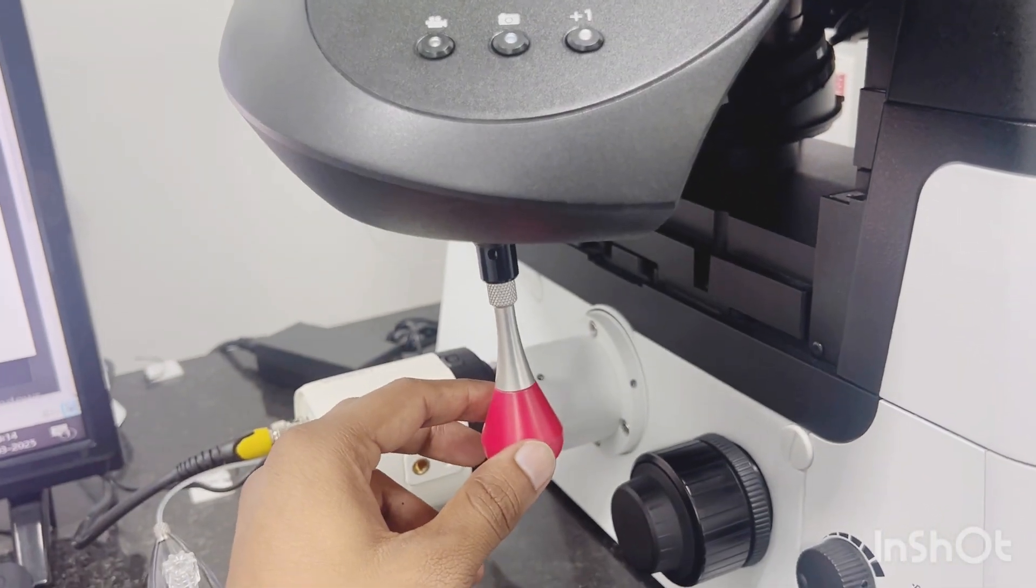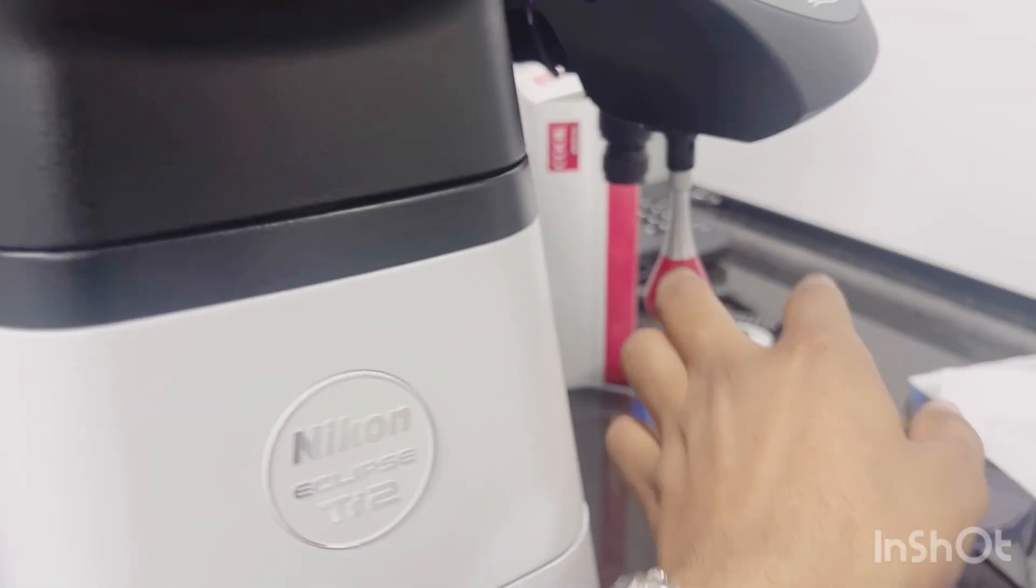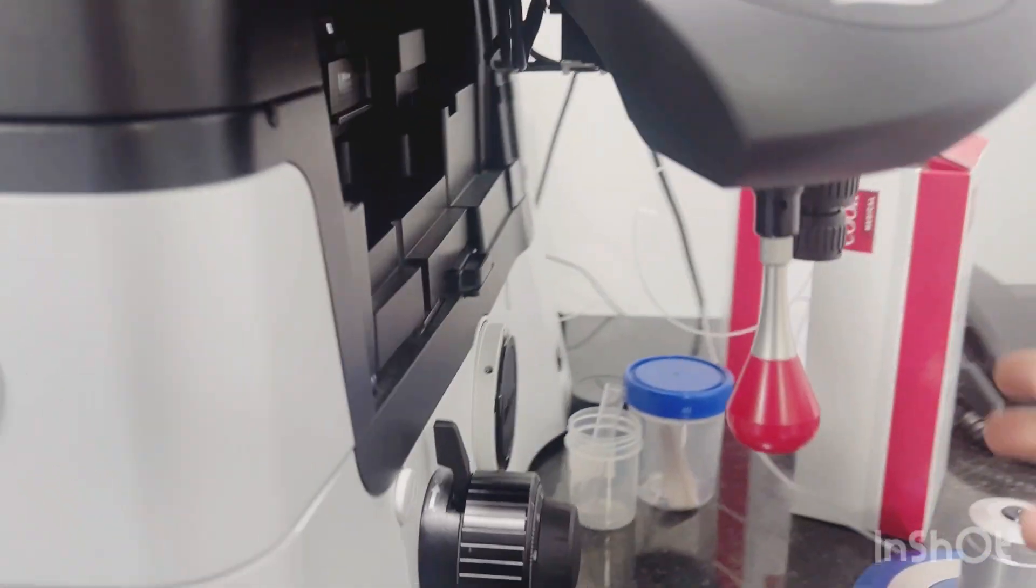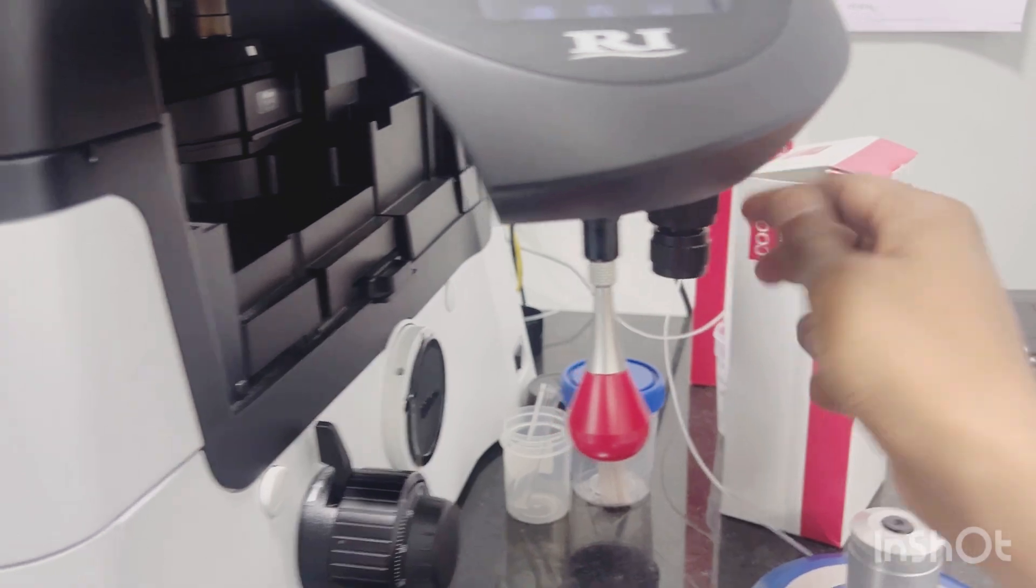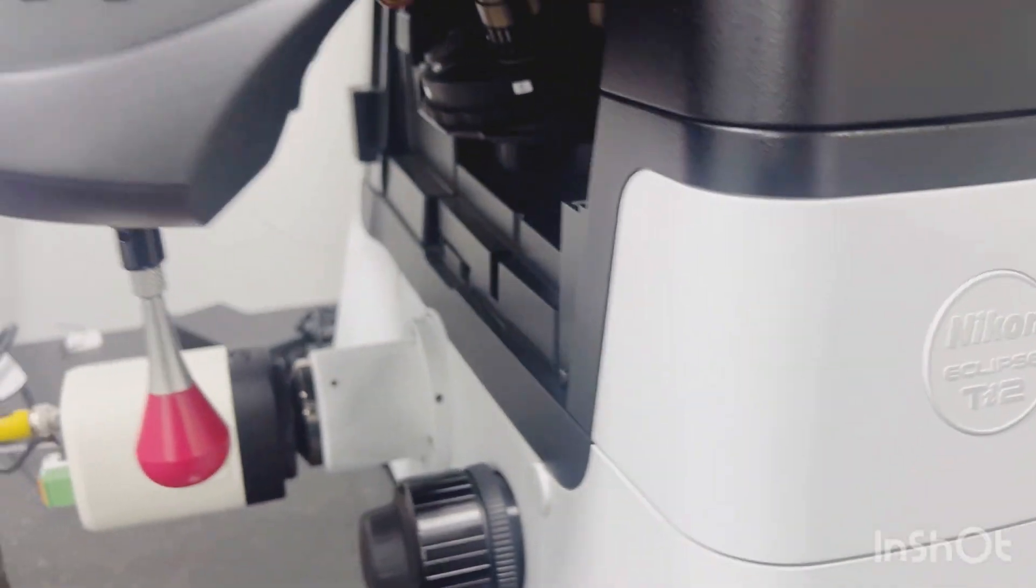This is the fine XYZ control lever on the left, and this is the XYZ control lever on the right. On the back side, there is the stage Y and X control.